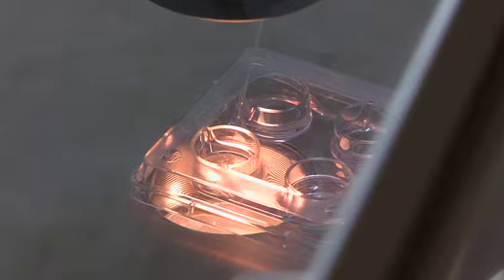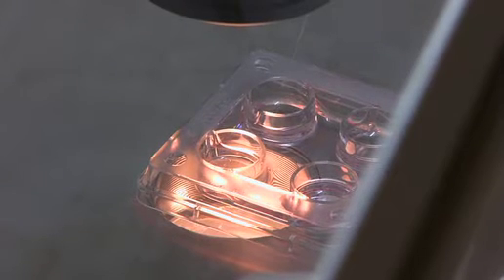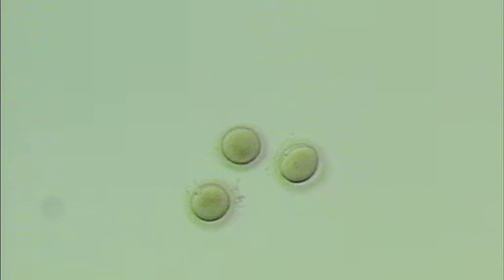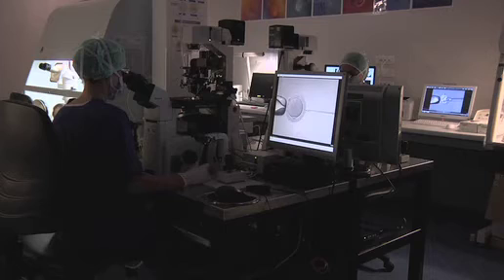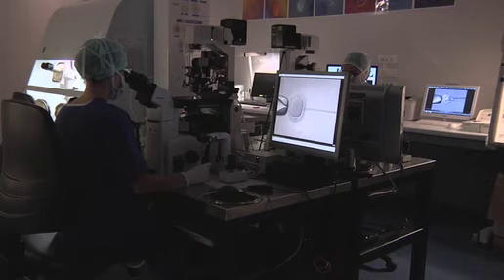After 30 seconds, each oocyte is moved in a second drop of clean culture medium where they are mechanically denuded. Slowly, all the somatic cells surrounding the oocytes are removed and clean oocytes can be assessed. After denudation, the maturation stage of the oocytes can be assessed by morphological observation. Denudation is necessary to perform intracytoplasmic sperm injection, to be able to inject a spermatozoon inside the oocyte cytoplasm.